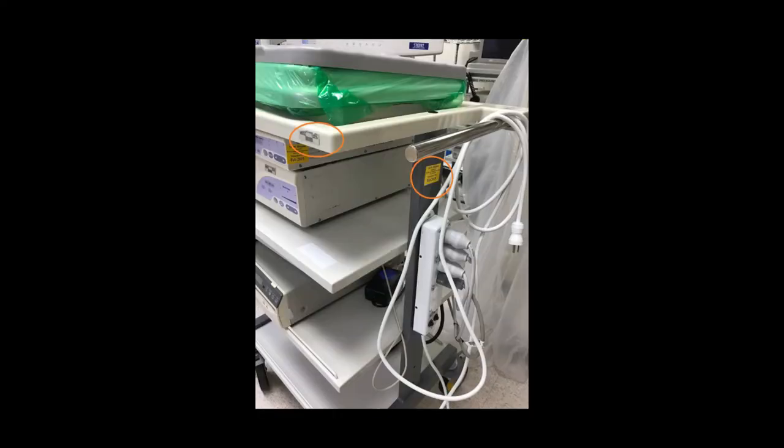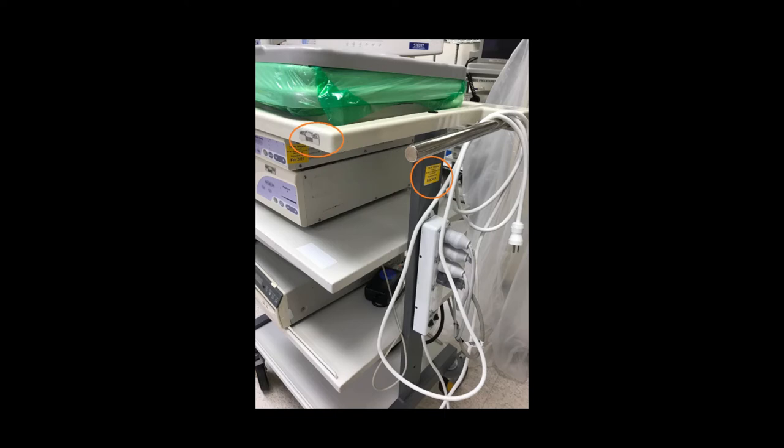The UL60601-1 needs to be inventoried and inspected annually.